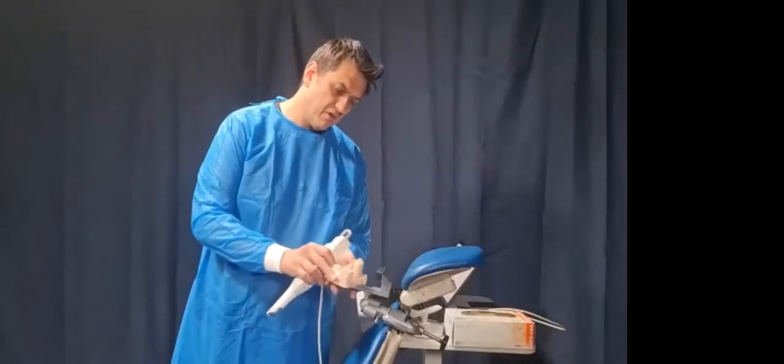Now I might put this back on the mannequin and show you just one more finger position with a close-up from our cameraman. If I could just get him to come in now, that would be great. So again, my index finger, and this is more realistic. We've got the head off the patient though. It's basically with my supporting fingers, just rolling around.